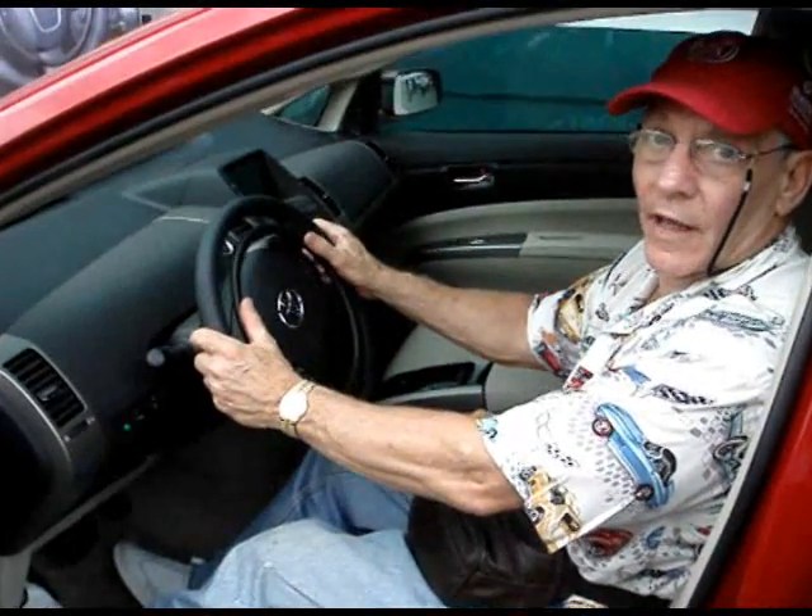The digital ring is a wonderful invention. I like it quite a bit, because your hands never leave the steering wheel. To accelerate, all you have to do is depress the ring and it will accelerate. You can even do it with one hand.